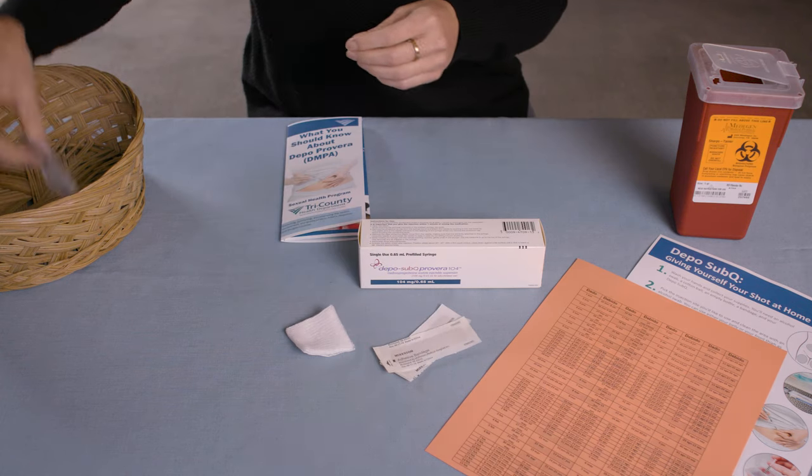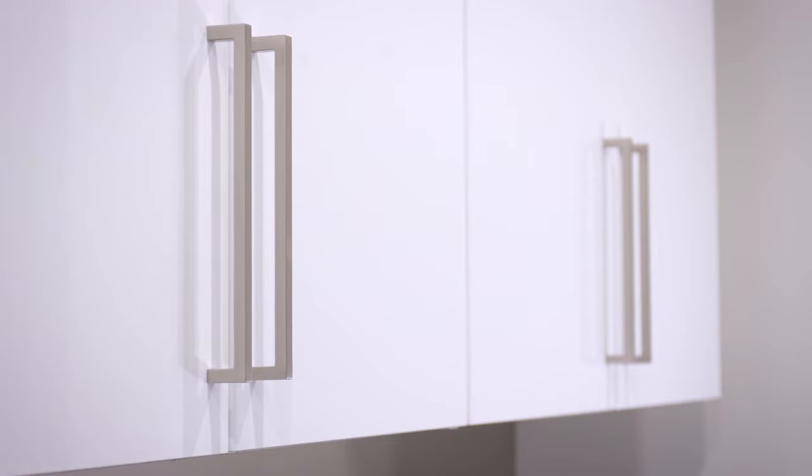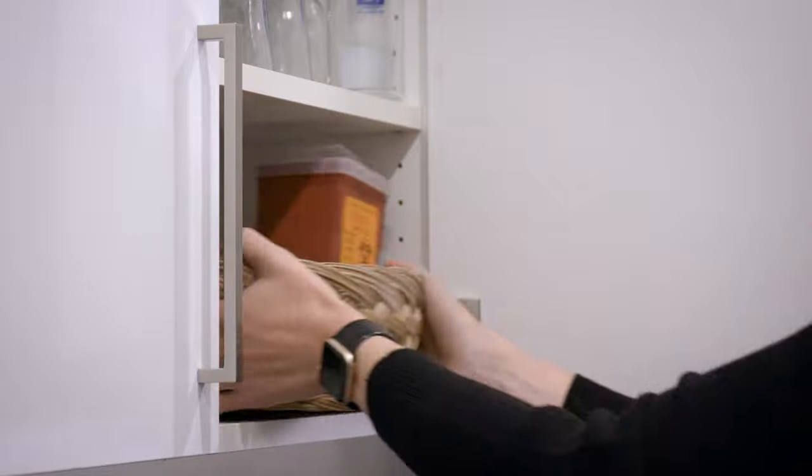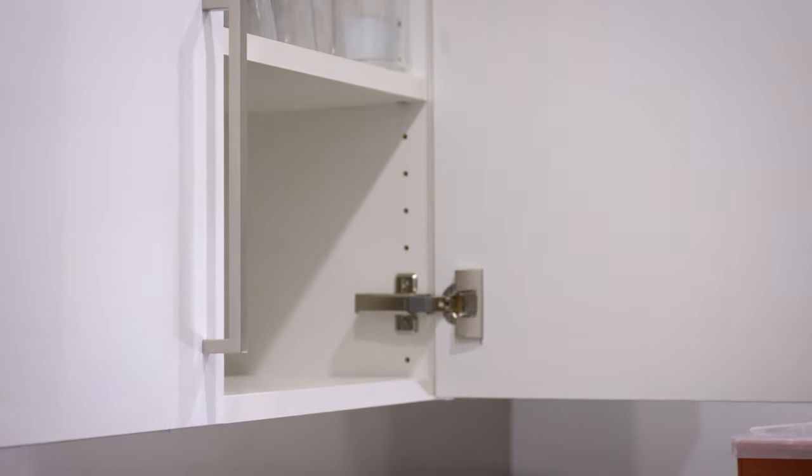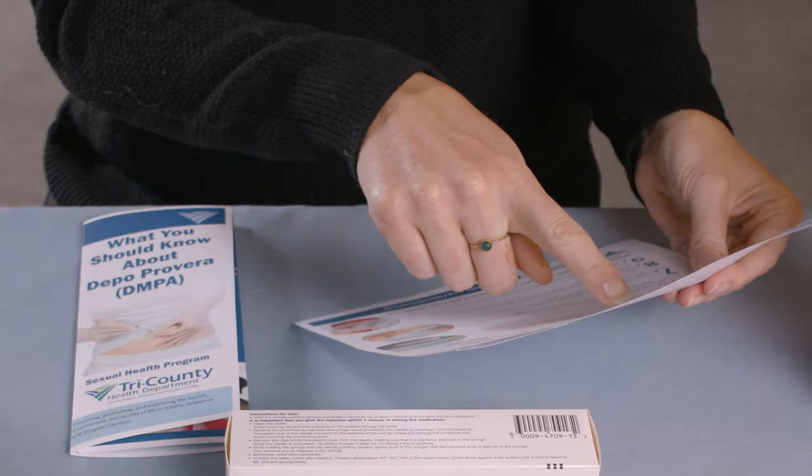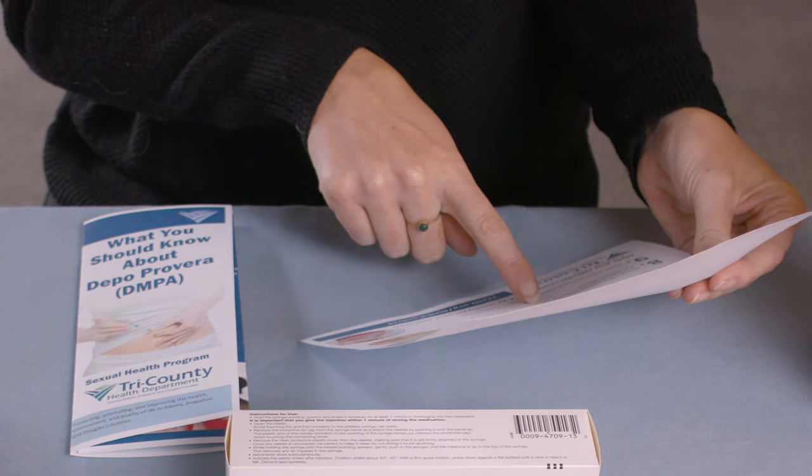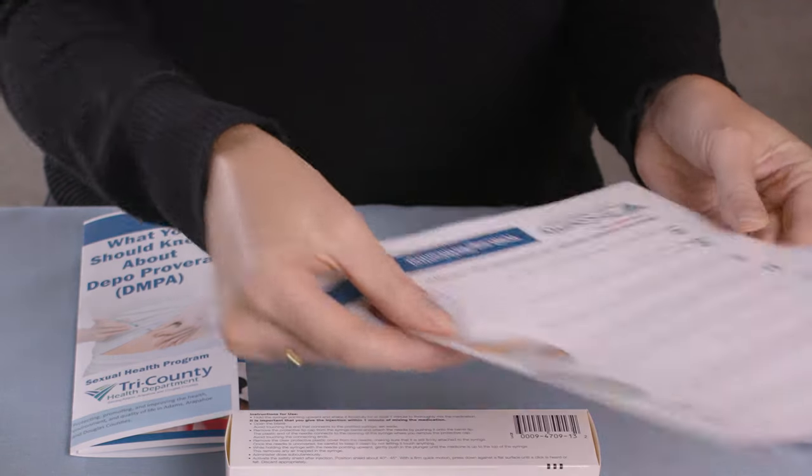You will receive Depo-SubQ to take home during a clinic visit. Store your Depo-SubQ in a safe place where pets and children won't be able to find it and where the temperature will not go above 77 degrees or below 68 degrees. You will have received an instruction sheet about how to give yourself Depo-SubQ.